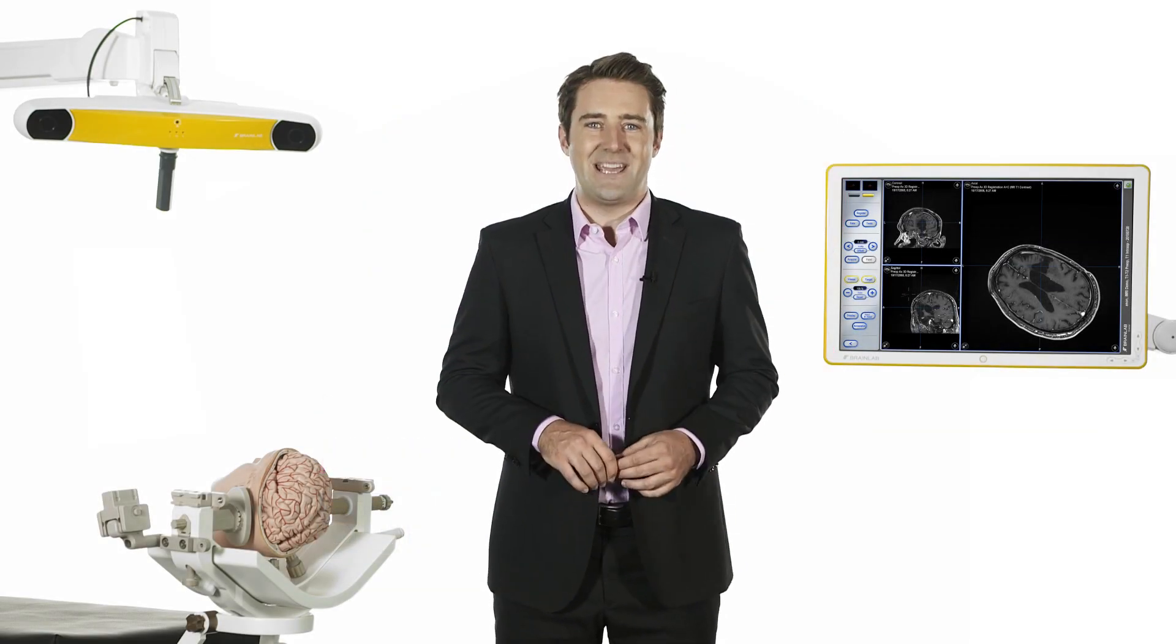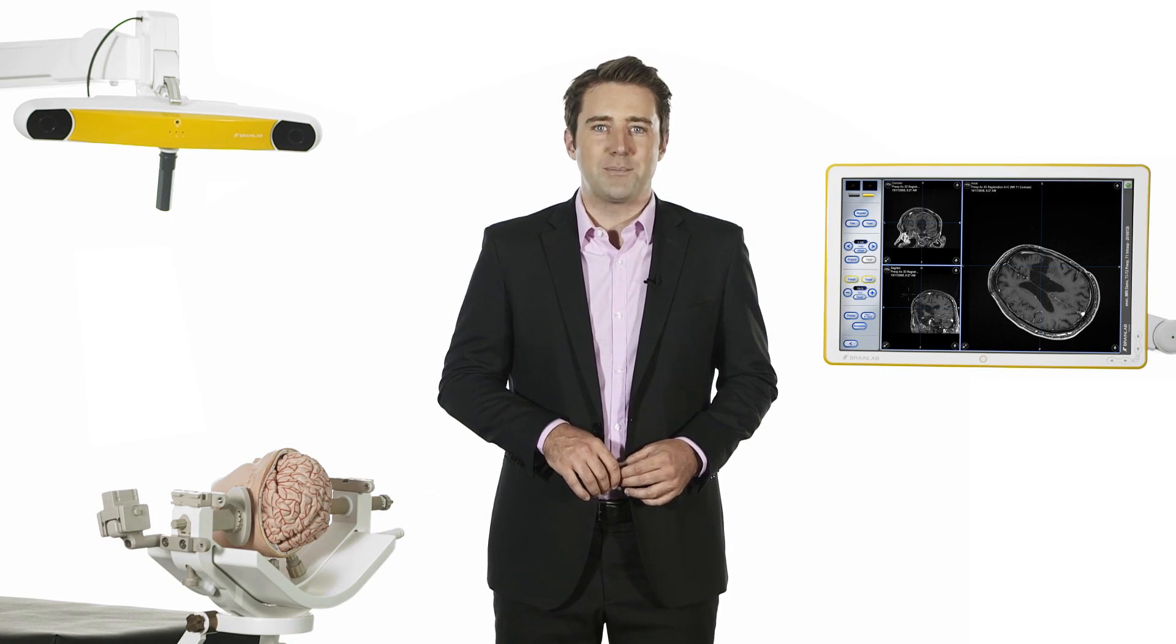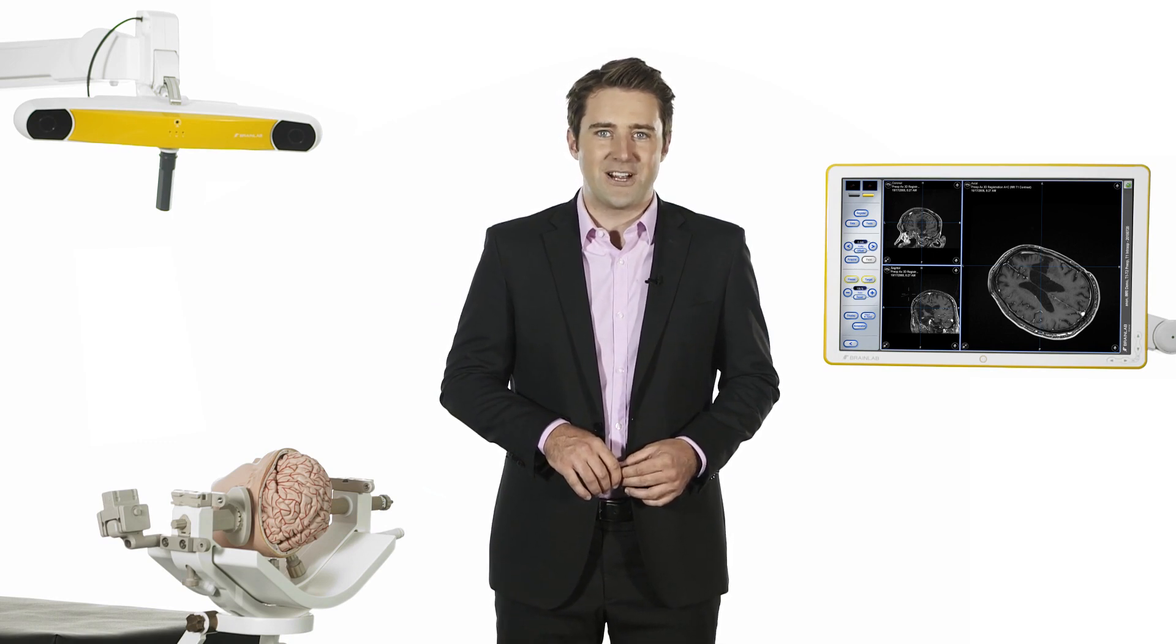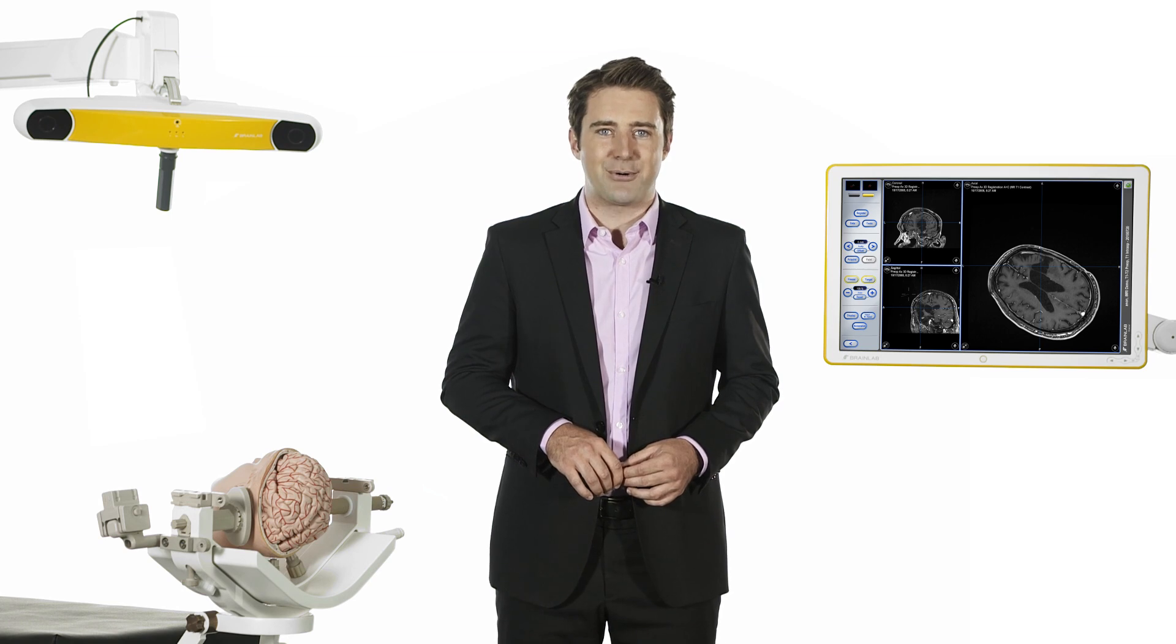This is Automatic Image Registration, a workflow-optimizing software that automatically registers pre- and intraoperative images from MRI scanners.